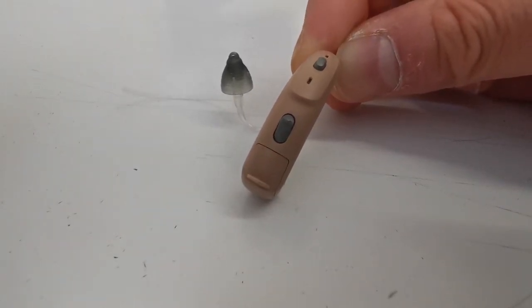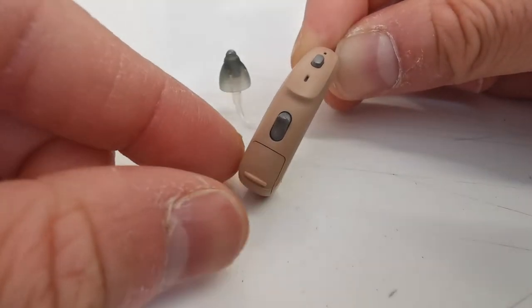In this video we will show you how to replace the battery. First of all, you need to open the battery drawer.